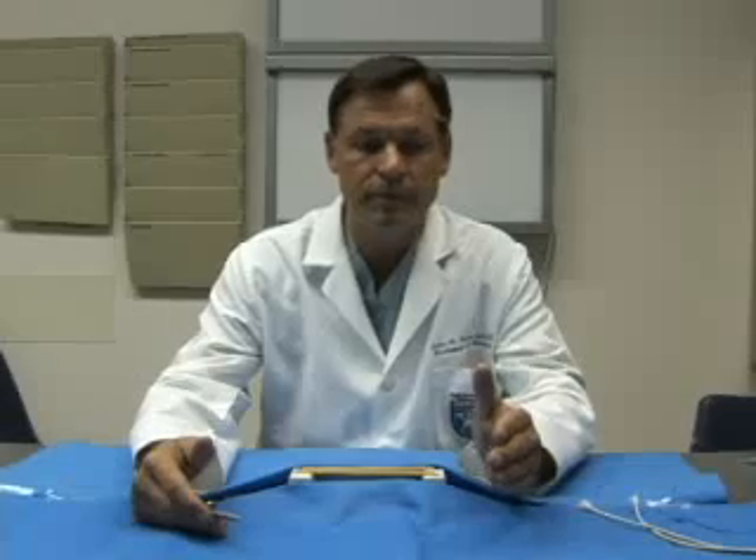There's one very important thing about learning to tie knots, and it applies to all kinds of technical skills: practice makes perfect, but imperfect practice makes for imperfect results. So as you're tying your knots around your bedpost, around your chair arm, around a button off your jacket, take the time to look at your knots and make sure that they're going down correctly.